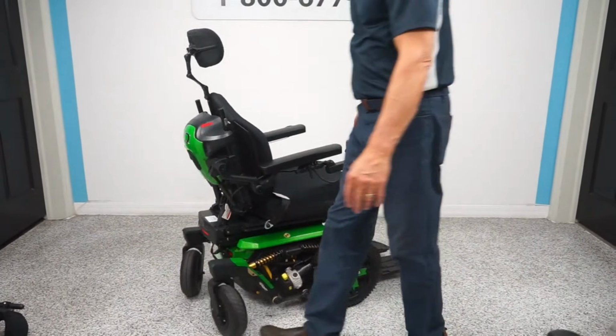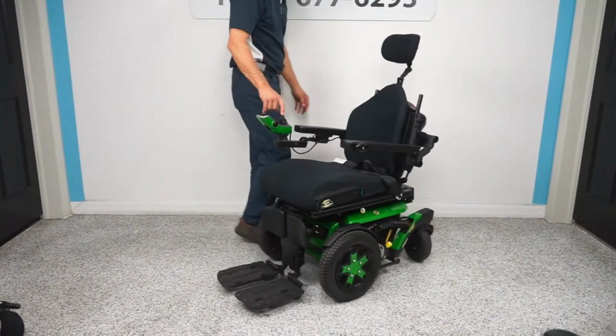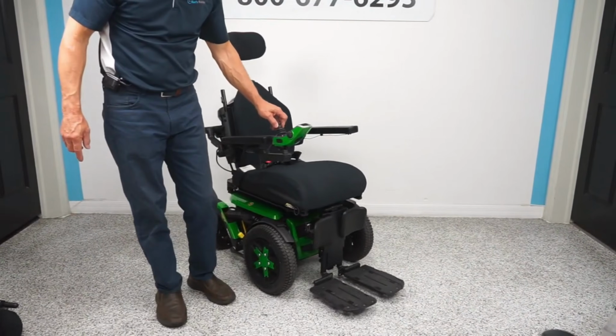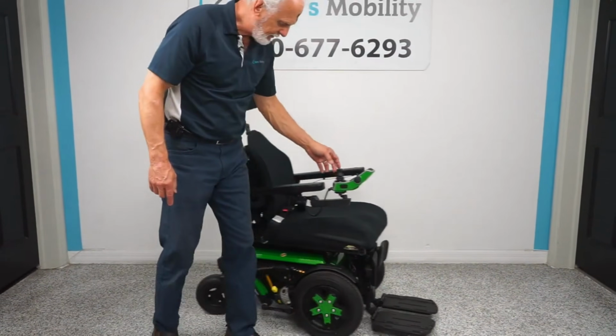So you can use a front wheel driven unit inside the house, but do know it is going to take up more space to turn than on a mid-wheel driven unit. So it's not like you can't have it. And when we're trying to identify for a customer whether they want a mid-wheel or a front wheel drive, we typically ask this next question: okay, you're going to be using it inside. Are you going to be using it outside? And what type of surfaces are you going to be driving it on?